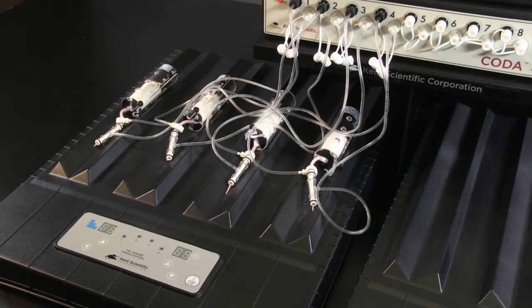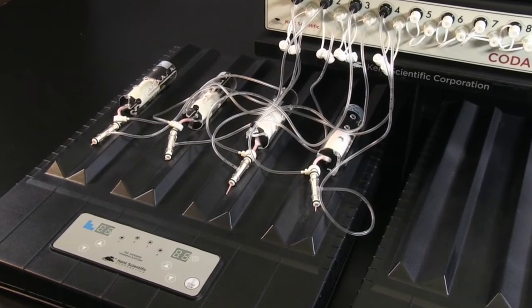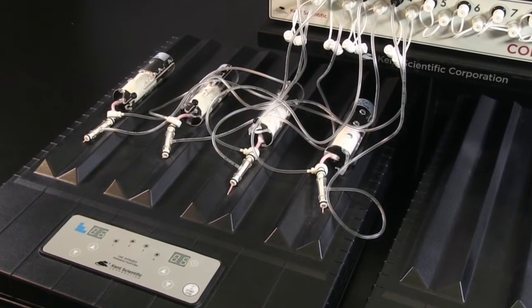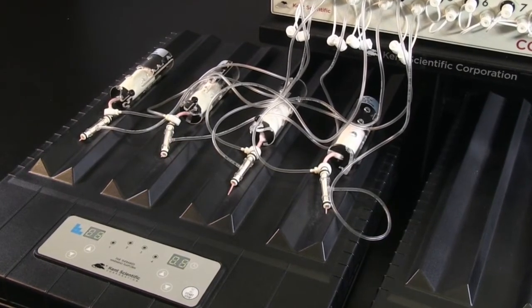The CODA high throughput system is cost-effective and requires no implant surgeries, yet still provides up to 99% correlation with telemetry and direct blood pressure measurements.